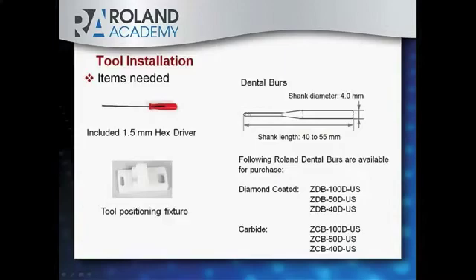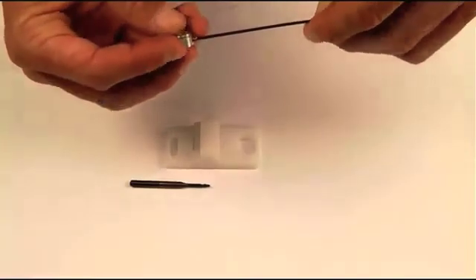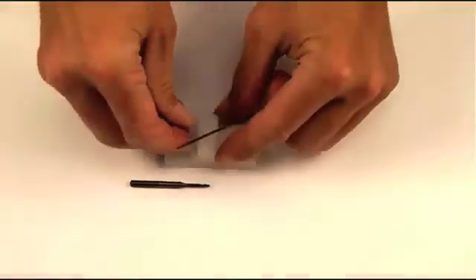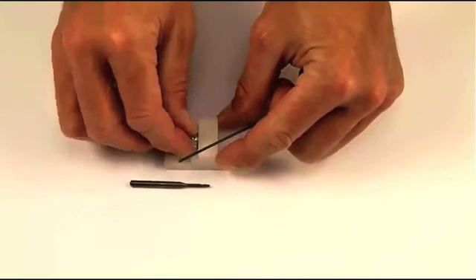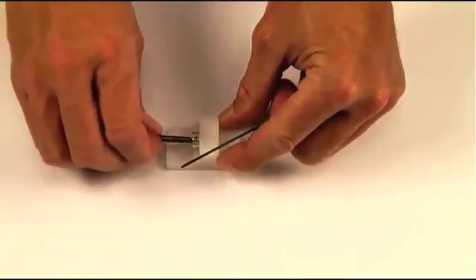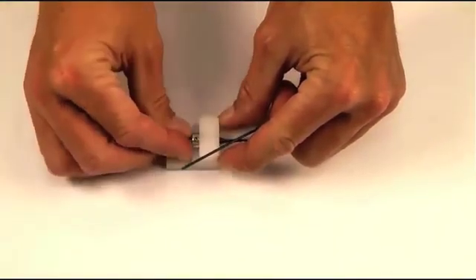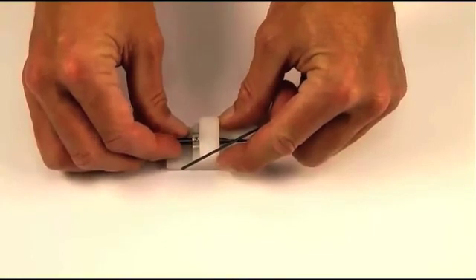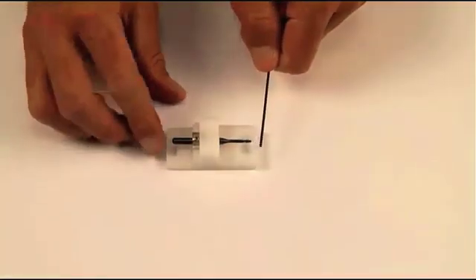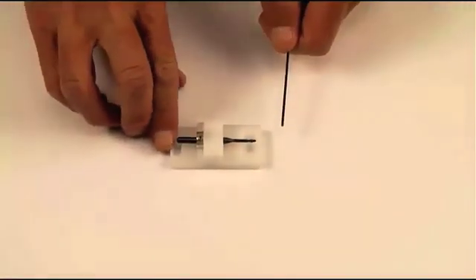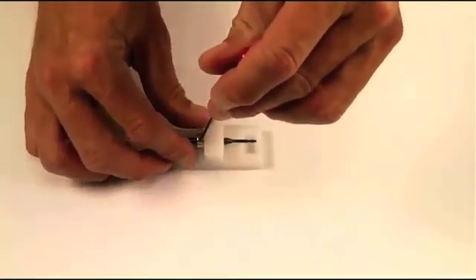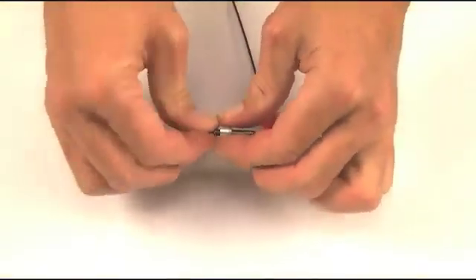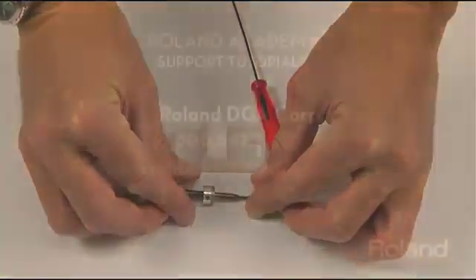To complete the tool installation process, you need your hexagon driver, a tool positioning fixture, and the correct size dental burr. Start by screwing the hexagon screw into the tool holder collar partially. You are then going to insert that into the tool positioning fixture with the magnet side down, being sure to seat it within the recess. Slide the tool into the collar, making sure to pay attention to the tip and tail positioning holes. Tighten the hexagon screw down. Be sure that it is firmly fastened and you are finished with the tool installation.